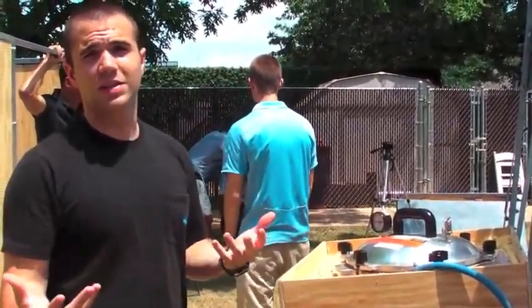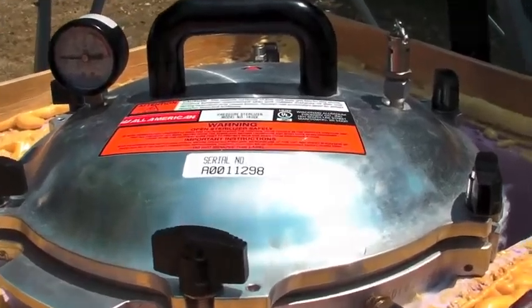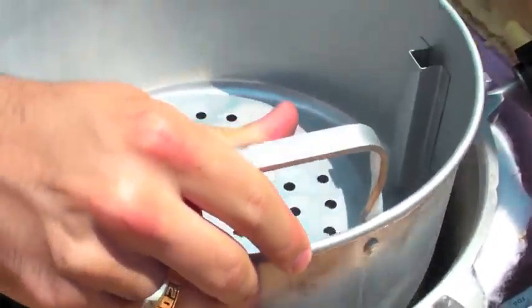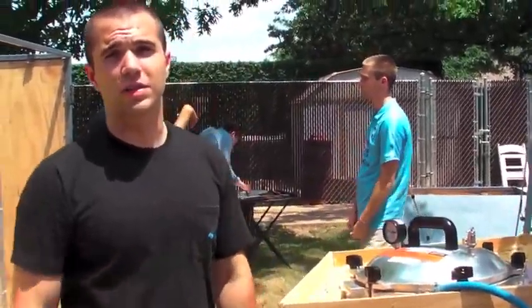As the steam travels to the plate, the plate is heated through convection and the autoclave sits right on top of that plate. Essentially, the plate itself just becomes like a stove top — it keeps heating up and becomes really hot. And then by the autoclave resting on top of it, through conduction, the autoclave itself heats up.